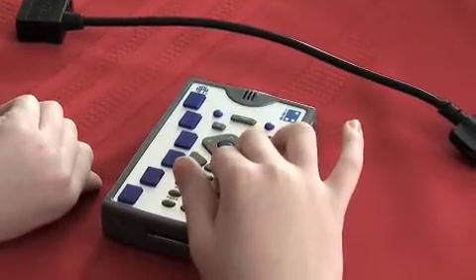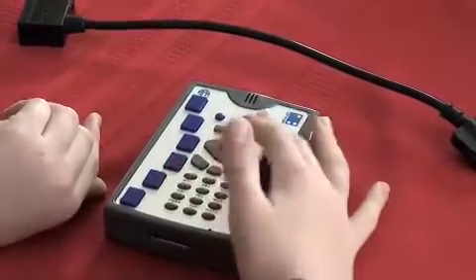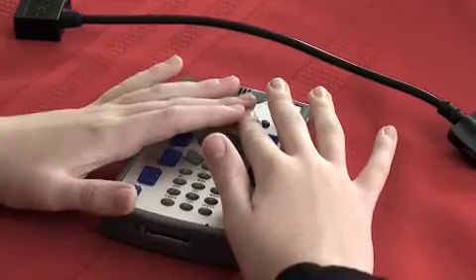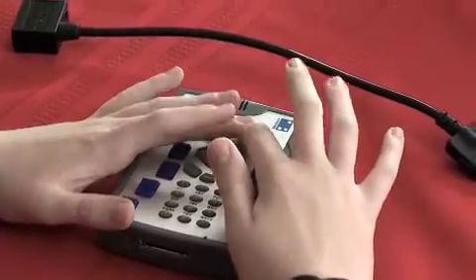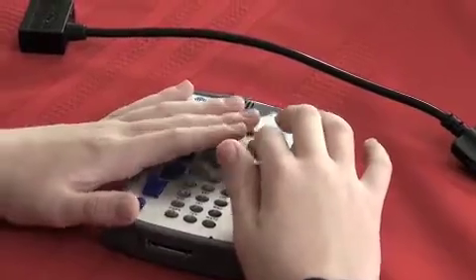To get out of Help, you'll need to press Cancel. Help closed. Applications menu. Another good feature of the Braille Plus is holding down Help. KeyLearn mode. Hold down Help again to turn it off. KeyLearn mode. In this mode, you can press any key.